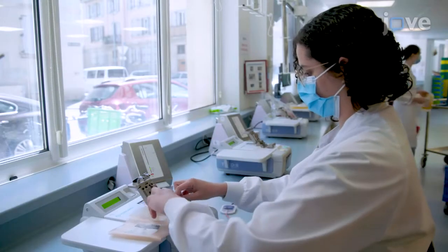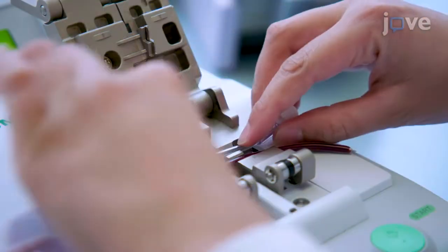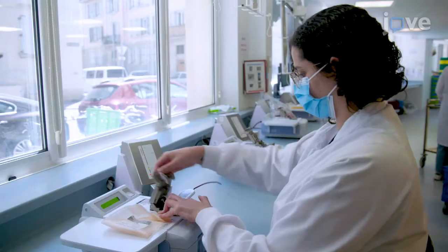Before beginning an experiment, connect a Leukoreduction Filter to an empty 600ml transfer bag and to a tubing set.